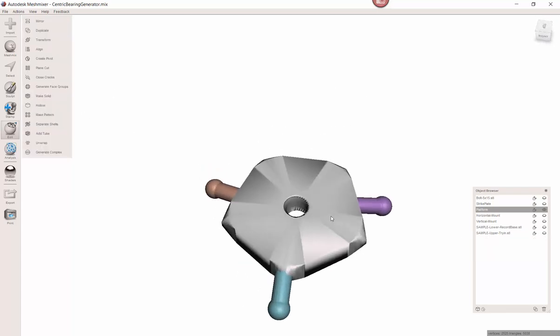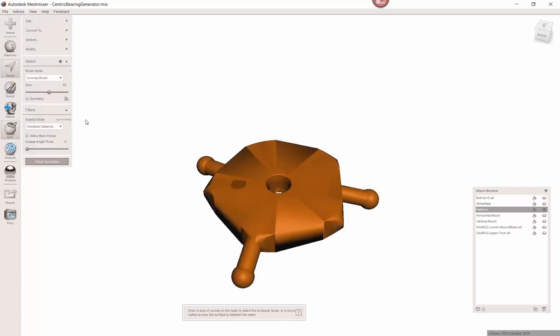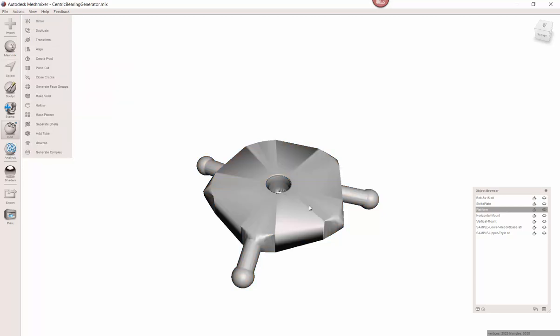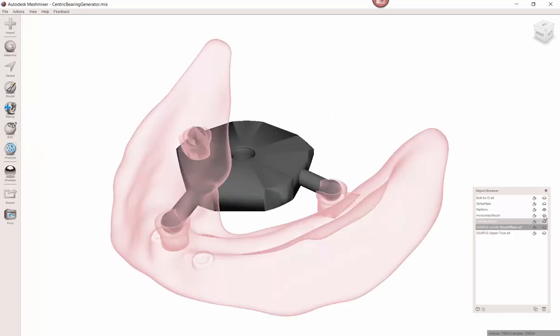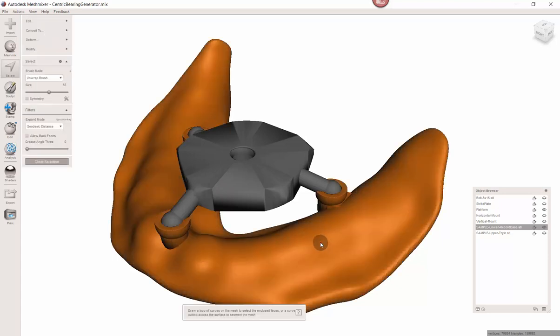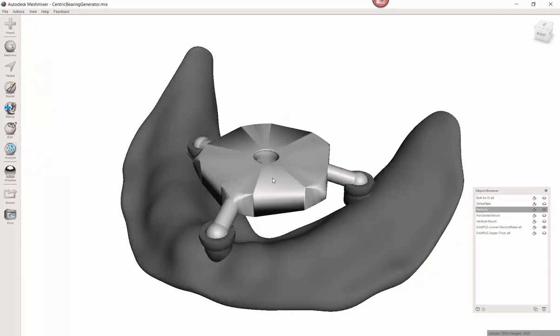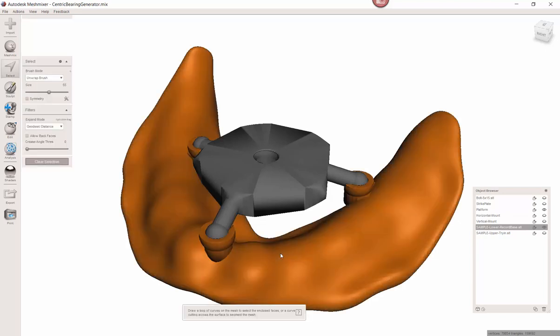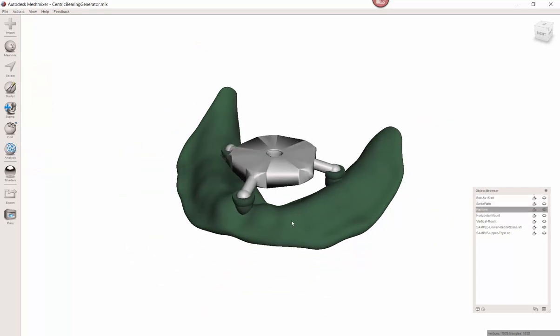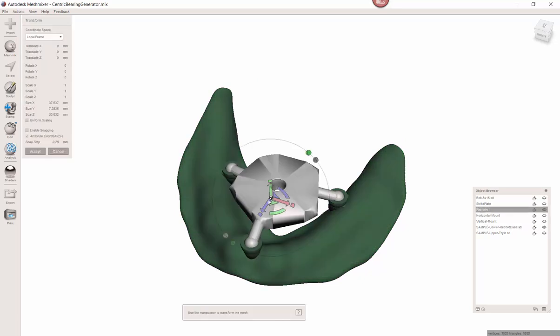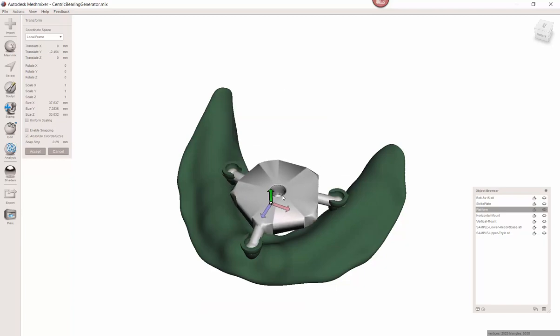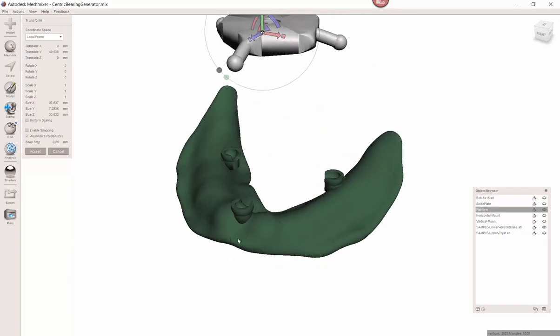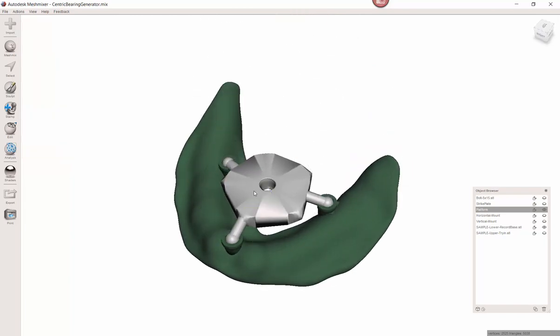So you see it's really not that difficult to do this. If it sounds confusing, I do apologize, but I'm going to walk through one more time. What I'm doing is right now, these two pieces are, the software thinks these are linked. So I click on S to select. If I double click here, it highlights this entire portion of it. I hit Y and it separates it. It adds it down here to my object list. That bottom piece. And I want to rotate that. So I click on that, but click on the pivot. And now I can rock it up. And the little arm is embedded within the platform. So again, in most cases, you will not need to do this. Most of them, you will get this nestled in there and they'll just be straight out and you'll be done in 30 seconds. But I want you to have the ability to account for complex cases where you need to angle those up and down.